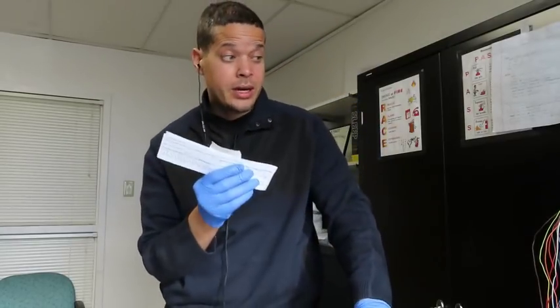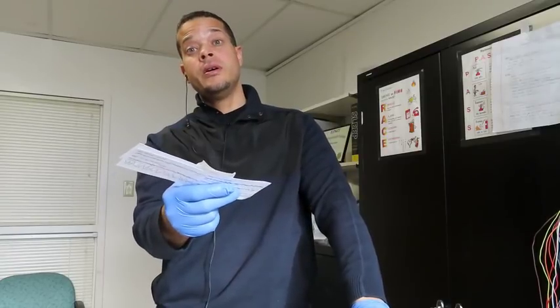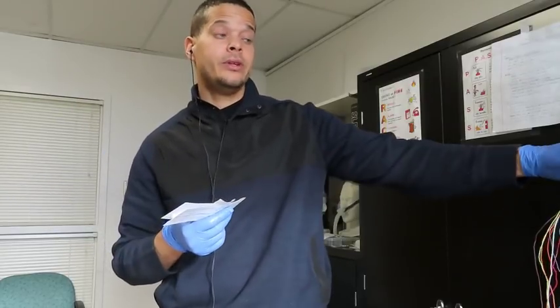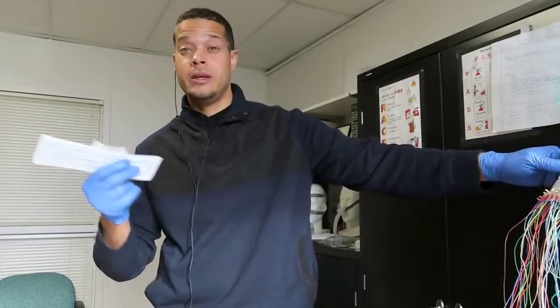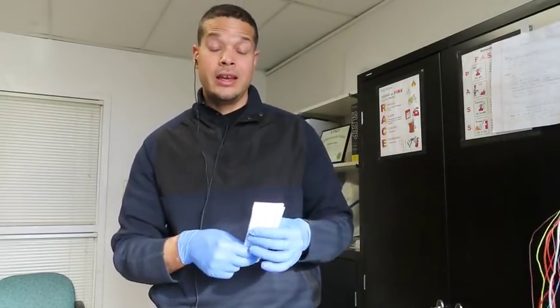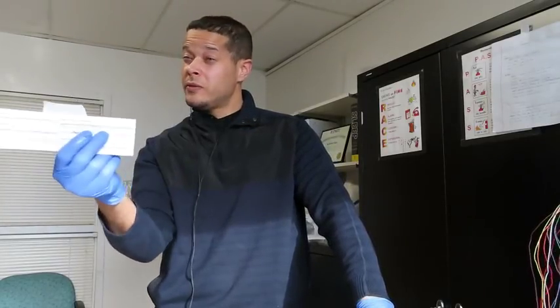So if you're not a fan of doing this when you come into the sleep lab, you can actually do it before you leave in the morning for your next day, and then when your patient comes in, you're already ready to go. You don't have to do any of this. You don't have to worry about rushing into work, so you have everything pre-set up. And again, I've been using it for years. It's going to last, if you do that, for 24, 48 hours.